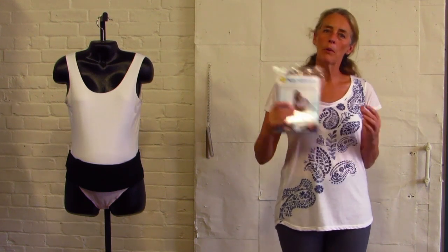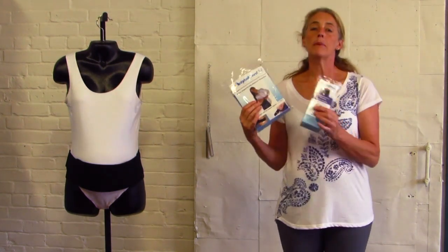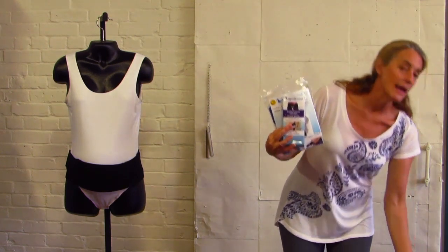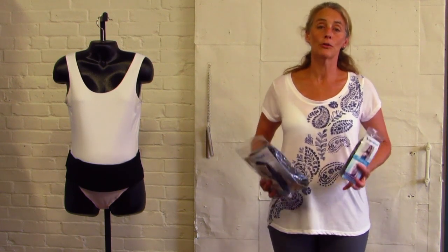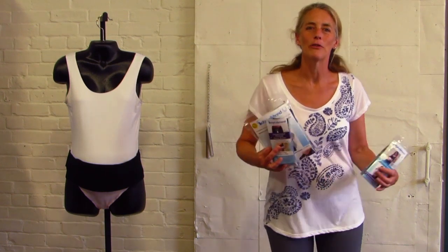So you're going to need a couple products: the Baby Belly Abdominal Band, the Baby Belly Groin Bands, the Compression Therapy Groin Bands, and you might want to add the shoulder straps as well. They give a big extra lift to your abdomen to release some of that pressure off your pelvic floor.